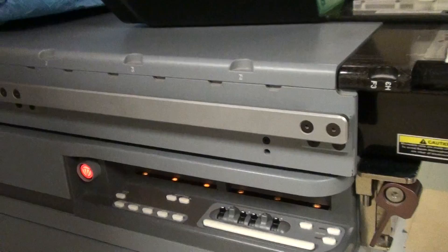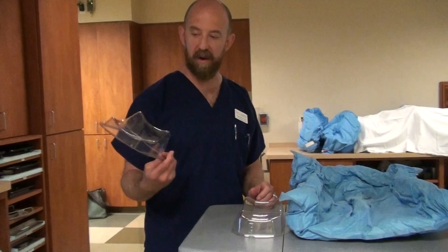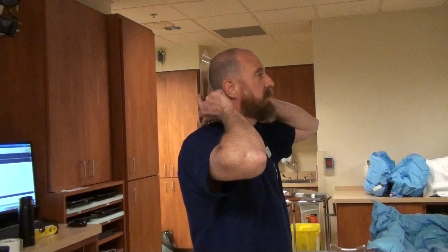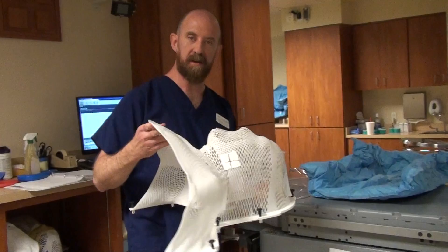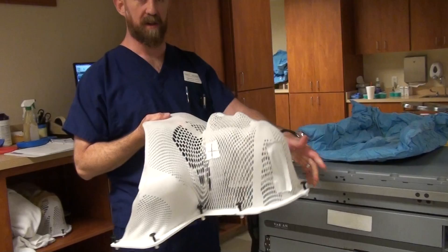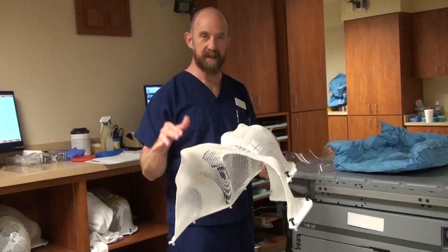Let's go over some treatment accessories. We have several headrests — we happen to use the clear Silverman headrest. The patient will sit with the back of their skull here and their neck here. It hooks to the table, and then you use an aquaplast mask to hold the patient in position so they can't move around during treatment. You will have markings on the mask itself; you align those to the lasers, giving you a three-point setup in three dimensions — in, out, left, right, and up and down.